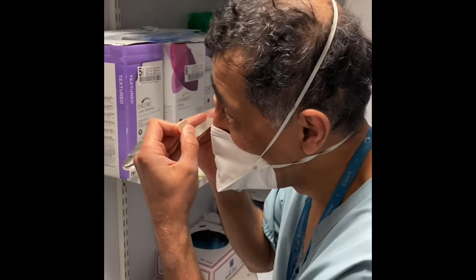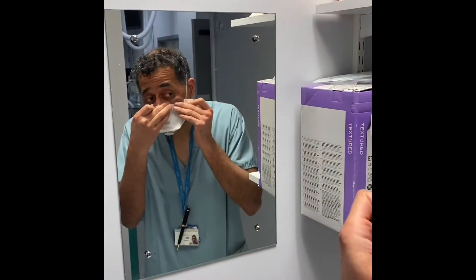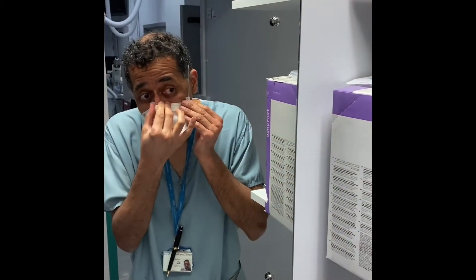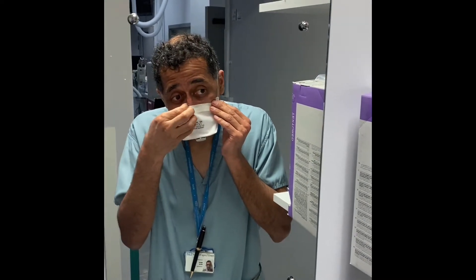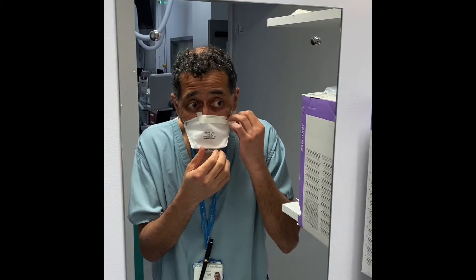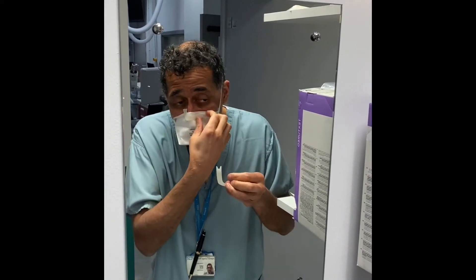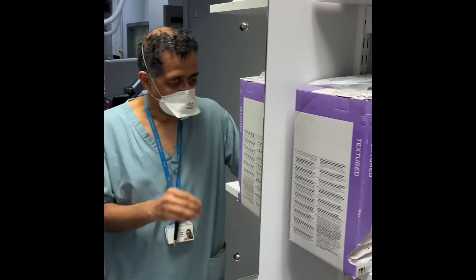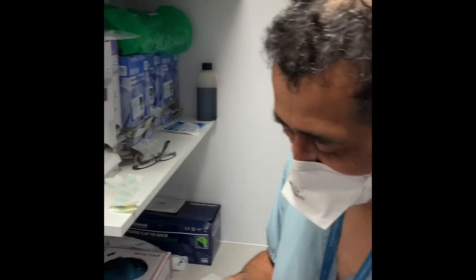I can see in the mirror that I've placed it and made sure it's stuck on the nose, taking it around the corner. Then we can try to peel off the backing without taking the Tegaderm off again. It's important to take this piece of paper off to ensure that the seal with the Tegaderm is as good as it can be. It also stops your glasses fogging up.